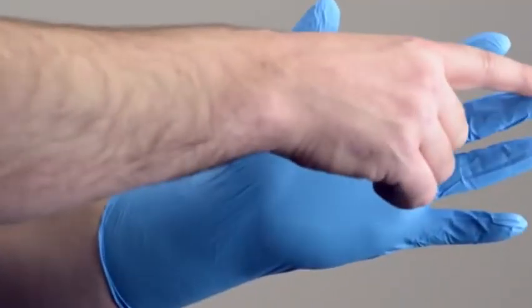It is 12 inches long, measured from the tip of the finger all the way down to the base of the cuff. The beaded cuff is over four times thicker to prevent tearing at the wrist and also makes the glove easier to don.